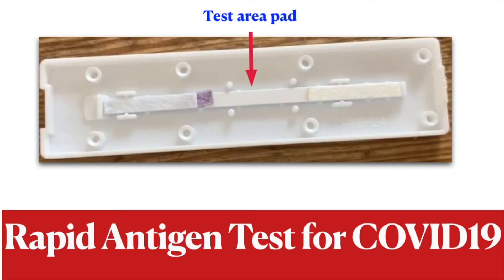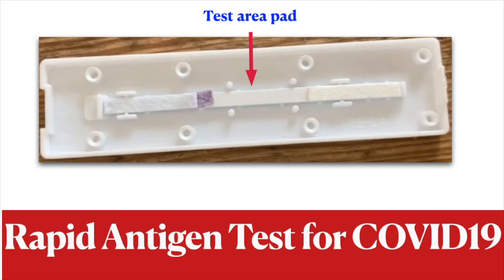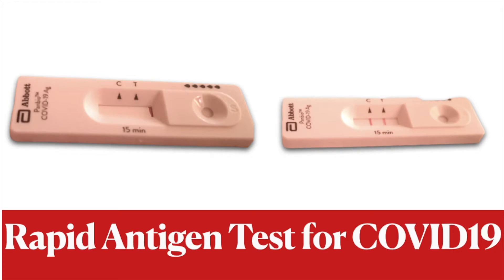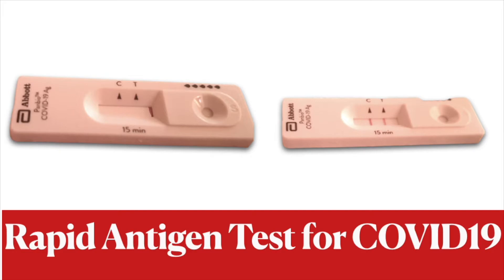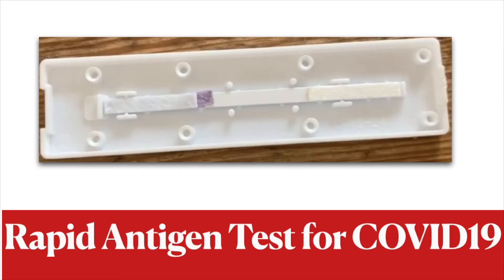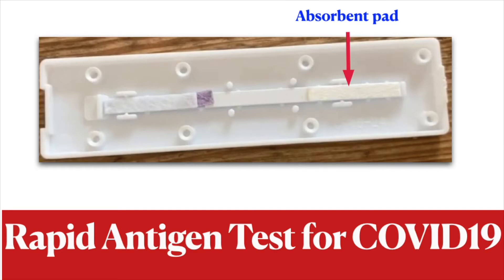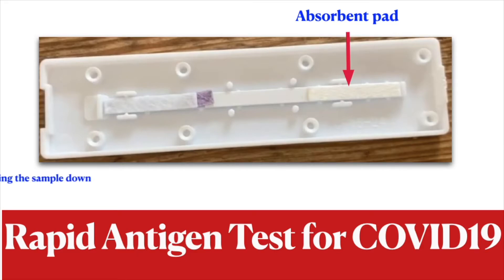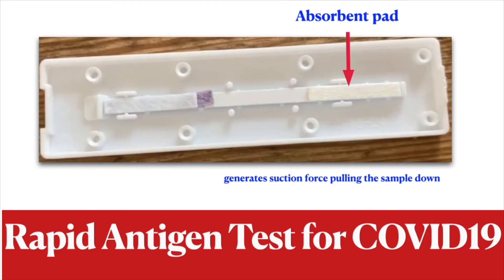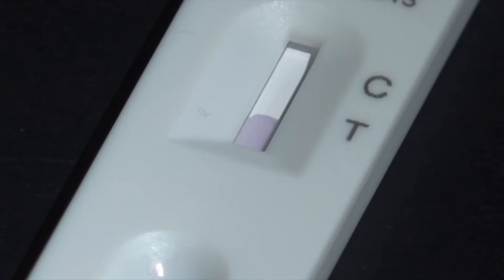The test pad is where you're actually going to get an assessment of whether you are positive or negative. It's going to have a test portion, and if that comes up red as a band, then you are positive. It will also have a control band, which is used to check whether the test actually worked, whether the cartridge worked. Finally, the last portion is your absorbent pad. This absorbent pad is critical — it acts like a wicking pad that draws the reagent by capillary action to the end, drawing the sample over the membrane through all the different reaction stages. This is the lateral flow mechanism that this kind of test is sometimes referred to as.